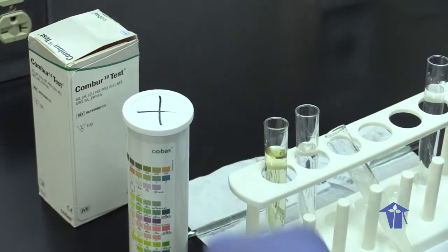So the colors on the dipstick are matched with those on the chart to give you a reading.